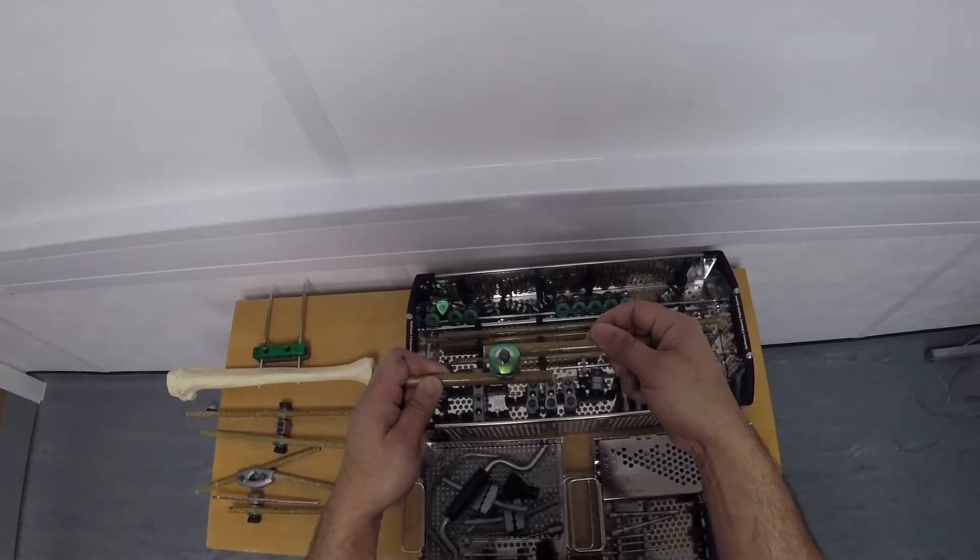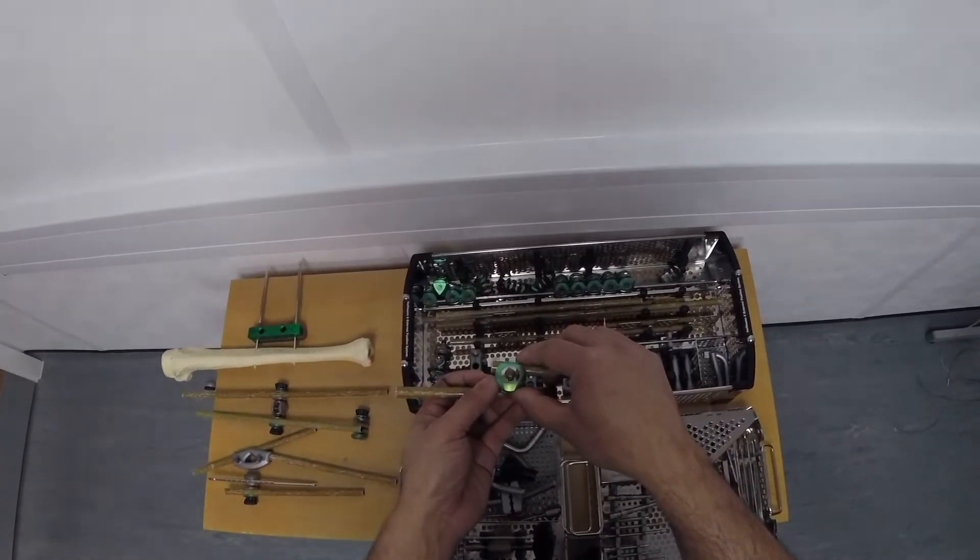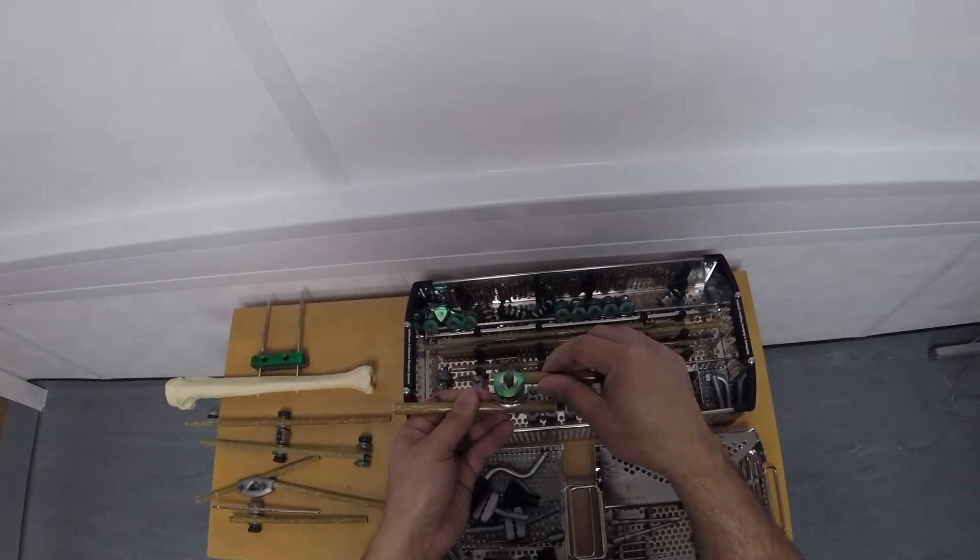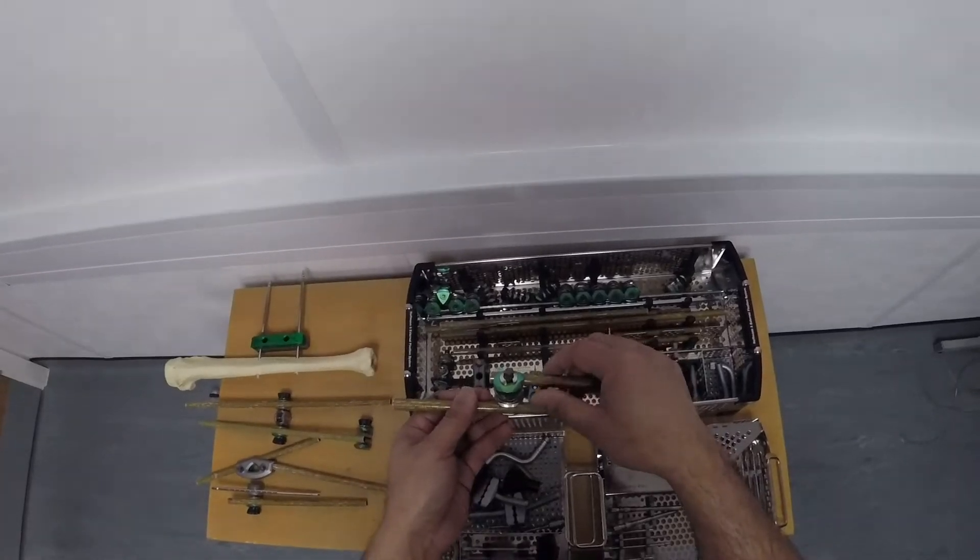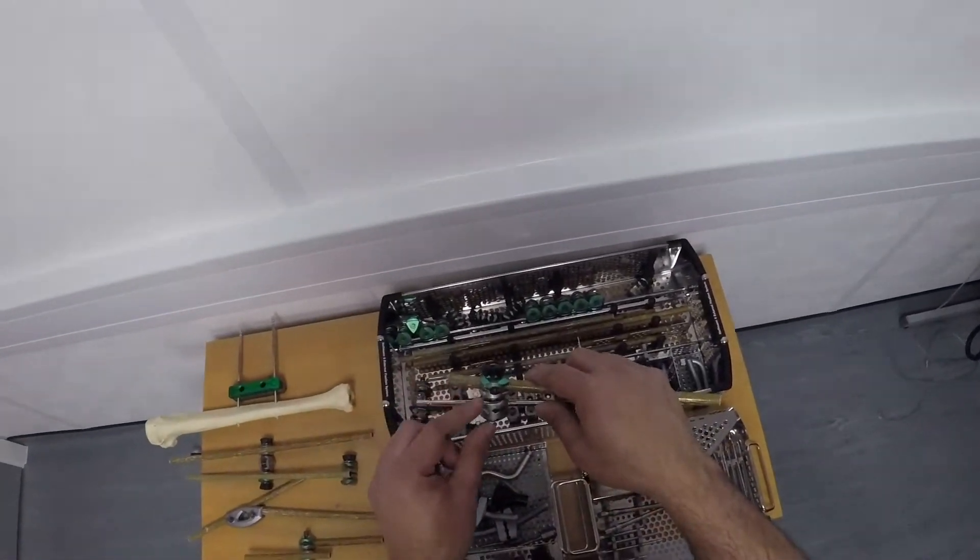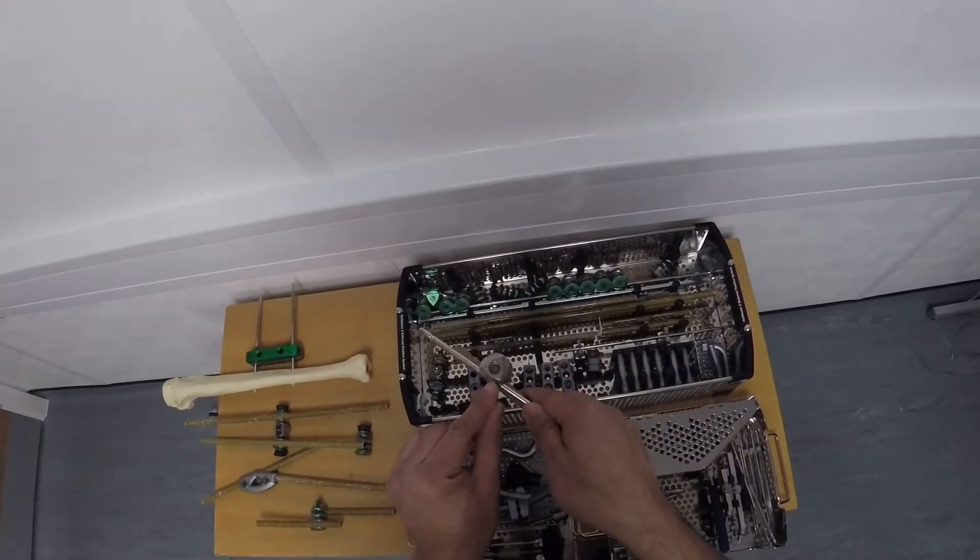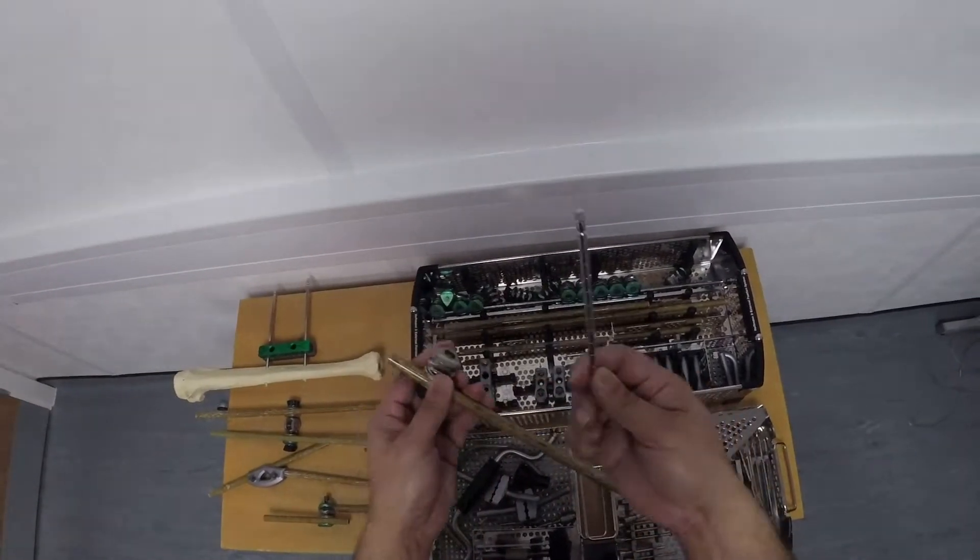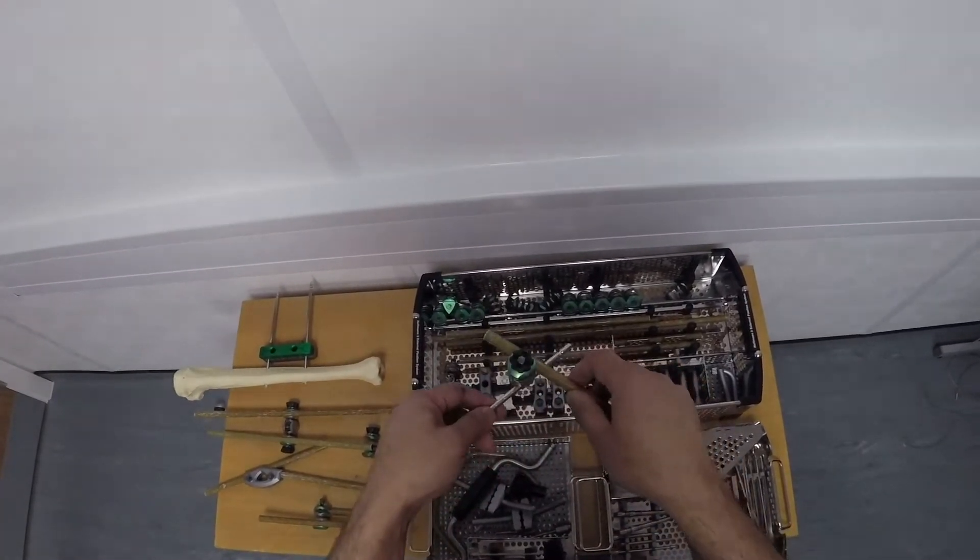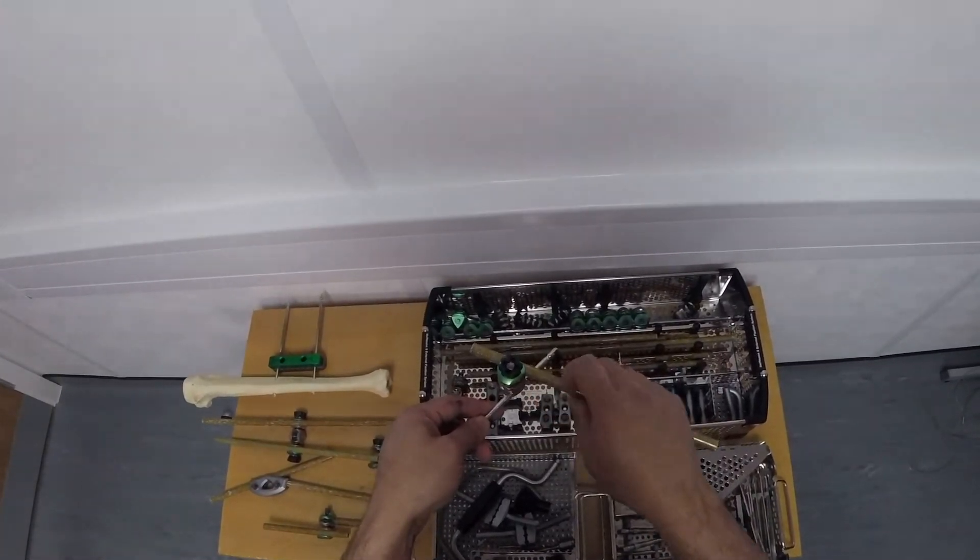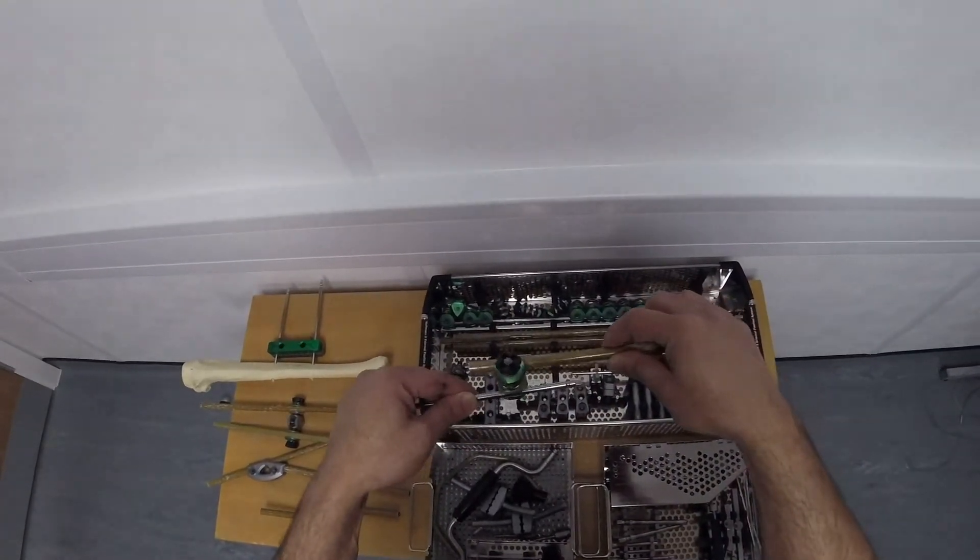Now what happens if you want to connect, say, a 6mm pin instead of a 5mm pin. Well, if that's the case then you need a different type of delta clamp. Whereas the other one was green on both sides, this is green on one side and it's silver on the other side. This is annotated with 4, 5 and 6. That means I've got a 6mm pin, which is my preference for the tibia and the femur. And again, I can connect an 11mm external bar or I could connect an 8mm external bar to that. That will give me the flexibility to be able to do this.